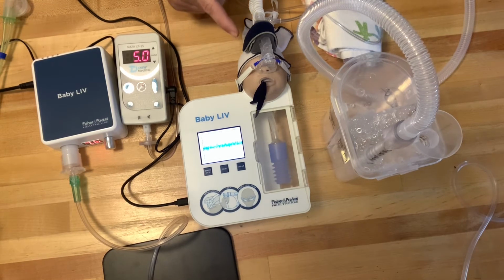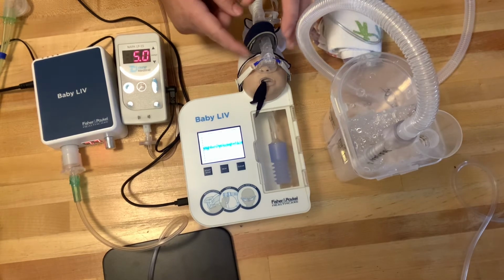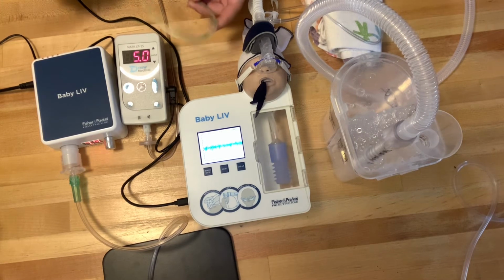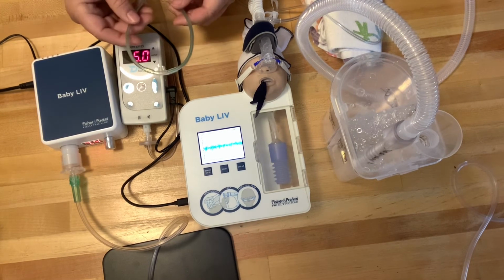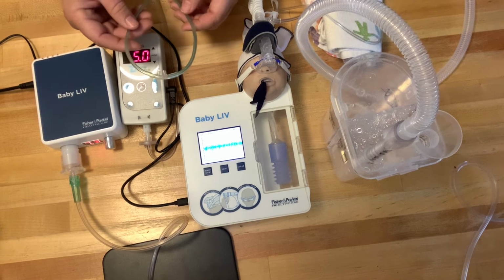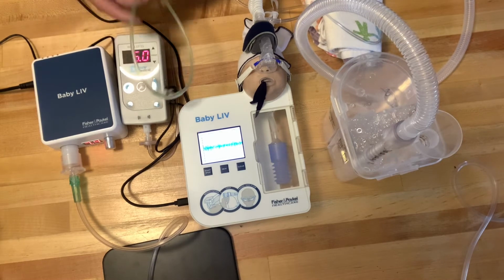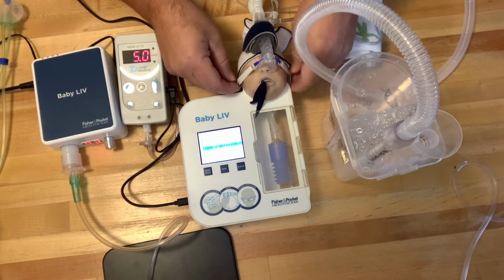What happens when I change from a nasal CPAP system, which has large bore tubing and full occlusion, to a cannula system, which has narrow tubing and a partial occlusion? I chose this size because it's based on the recommendation from the manufacturer to go at 80% occlusion whenever you go onto CPAP. So let's go ahead and remove this.